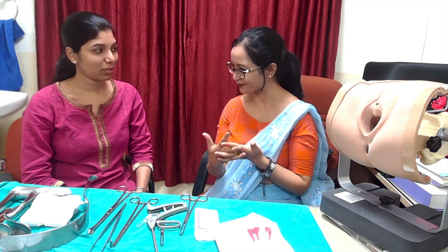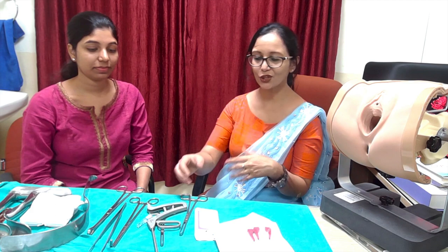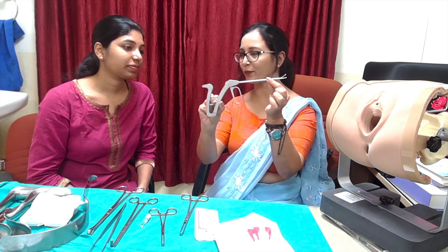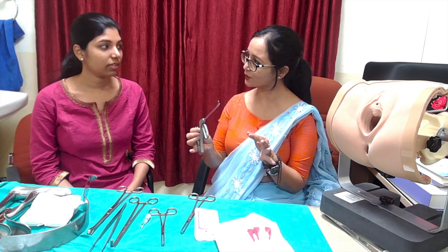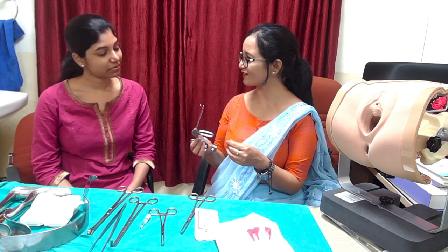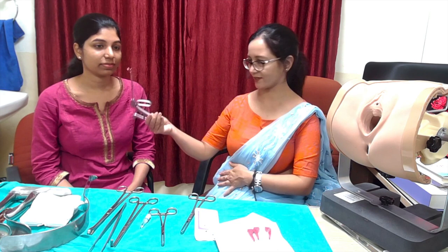The instrument we use is the Scorpion, from the Arthrex company. Smith and Nephew also has a similar disposable device available. The reusable device can be used for six to eight patients. The Scorpion has a small aperture for holding the suture thread and can accommodate only size 1-0 or 2-0 suture material.